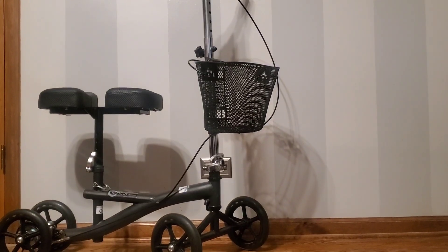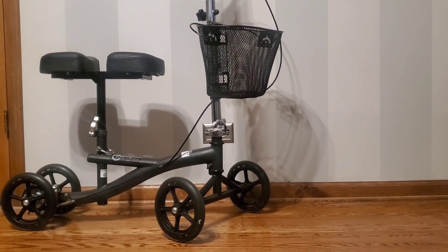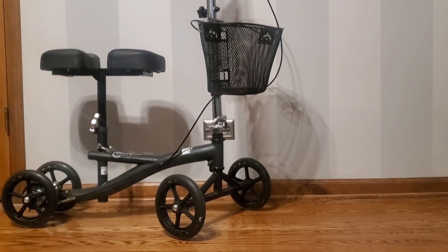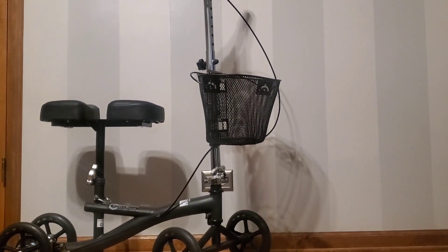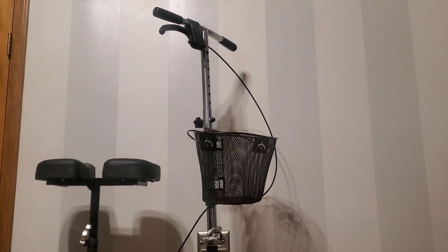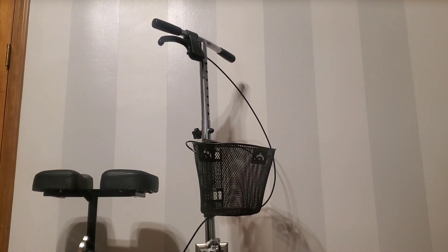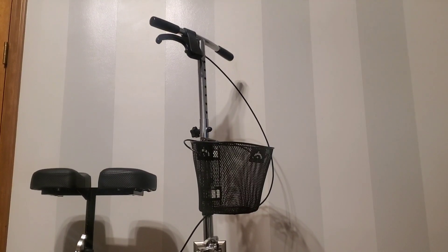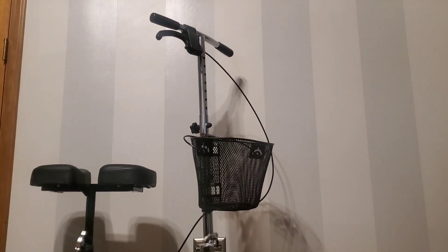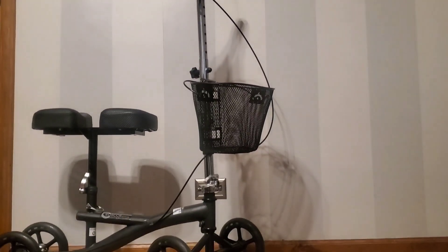You can see a lot of perks to it. Because of having the wheels, he had a lot more control and balance to move. He loved having the basket — sure, he could put a dog in there, but it was really handy to take his things around the house.